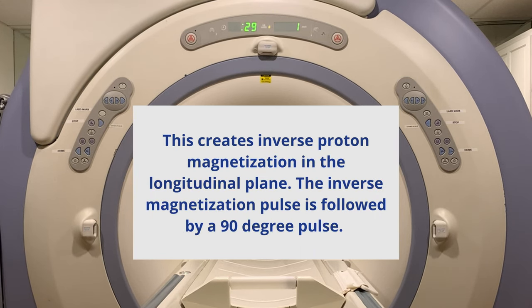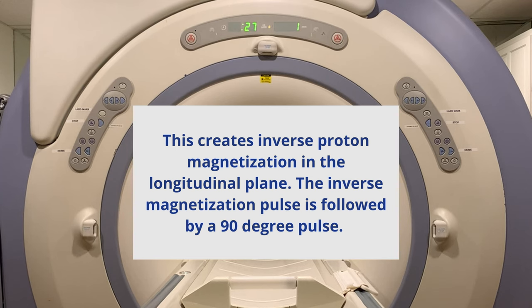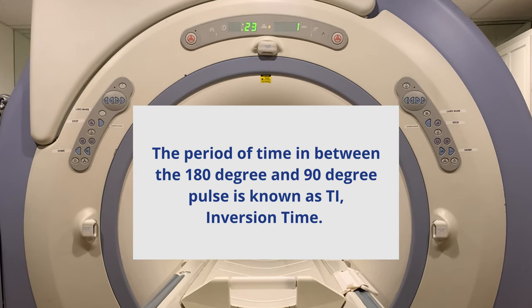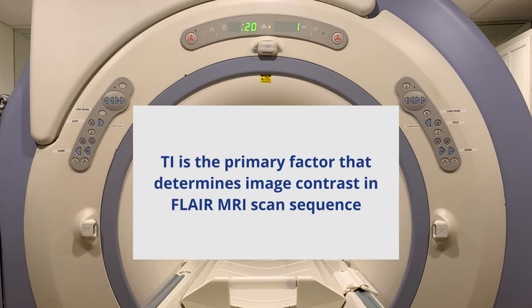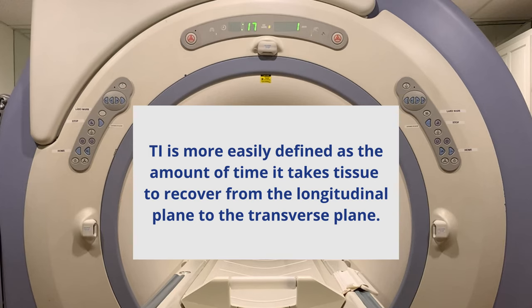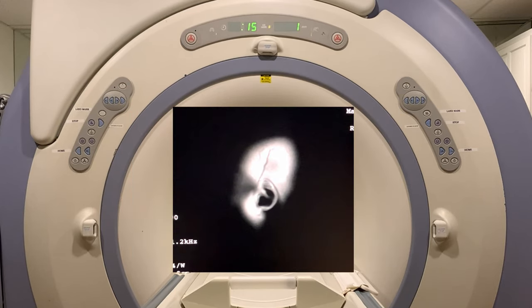The sagittal T1 FLAIR MRI series is a fast inversion recovery sequence designed to achieve better tissue contrast-to-noise ratio as well as better signal-to-noise ratio in a shorter amount of time when compared to a spin echo gradient echo scan sequence.